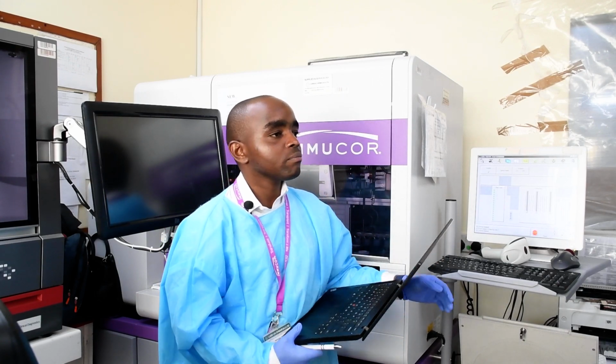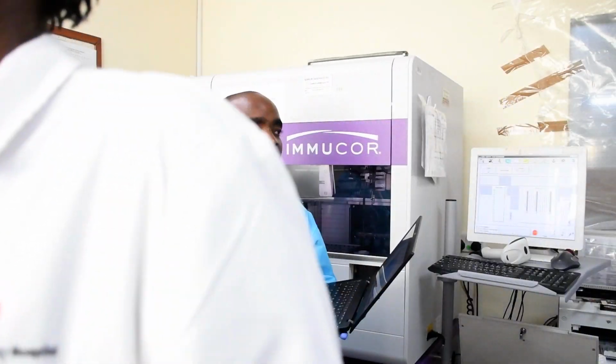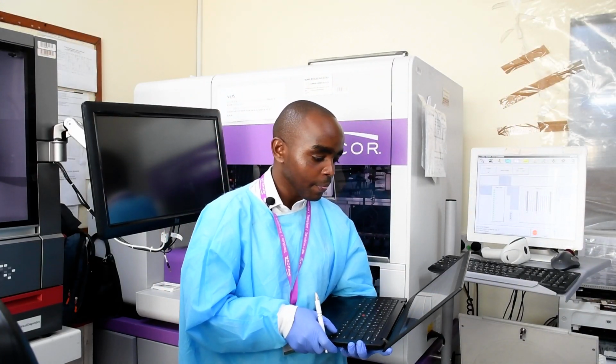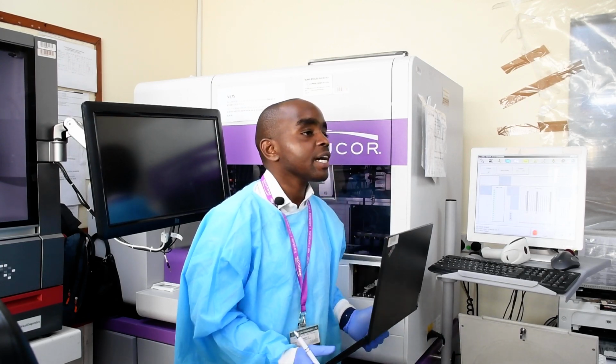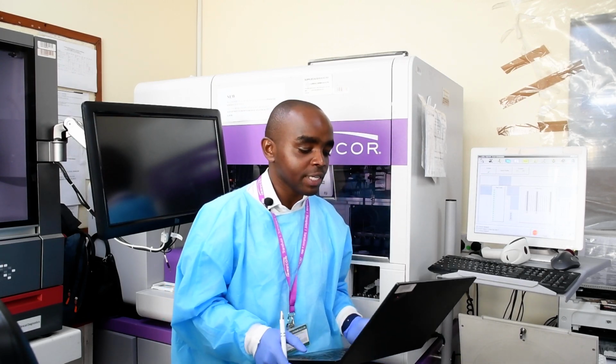So it will use a higher volume of the reagents. And so we said the IgG one, you are just going to use the Capture-R Select. So the capture plate is Capture-R Select.